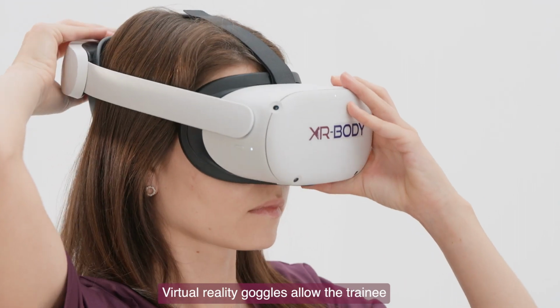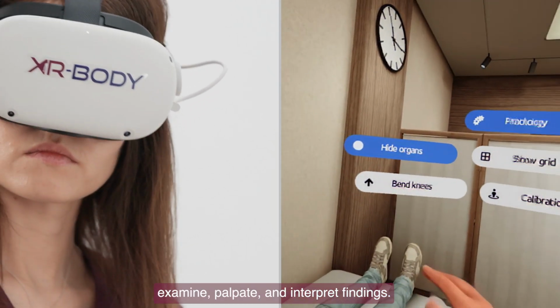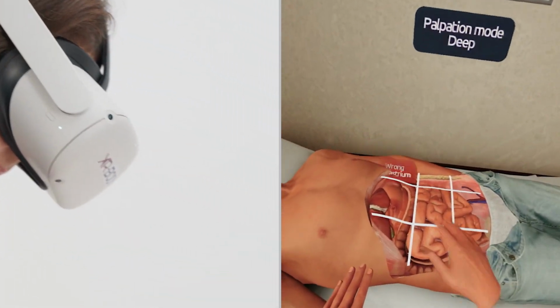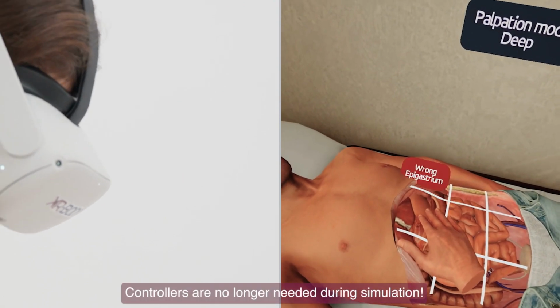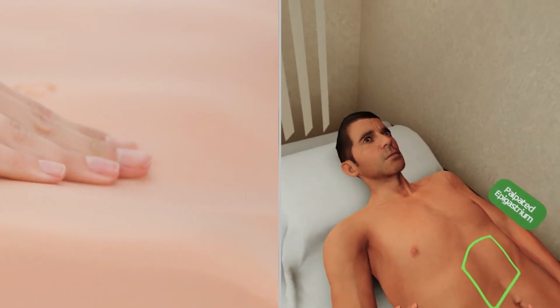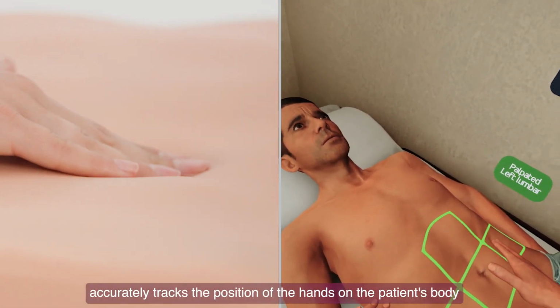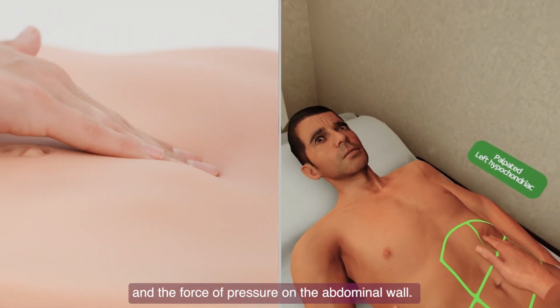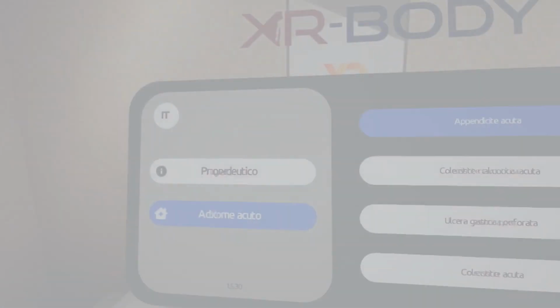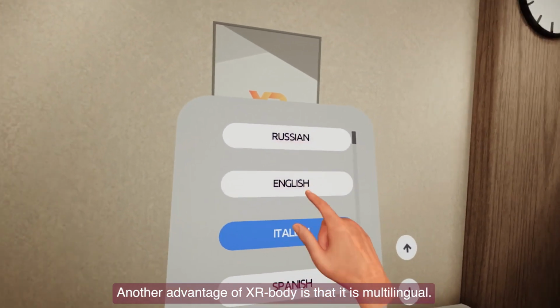Virtual reality goggles allow the trainee to see the virtual patient full length, examine, palpate, and interpret findings. Controllers are no longer needed during simulation. A system of built-in sensors accurately tracks the position of the hands on the patient's body and the force of pressure on the abdominal wall. Another advantage of XR Body is that it is multilingual.